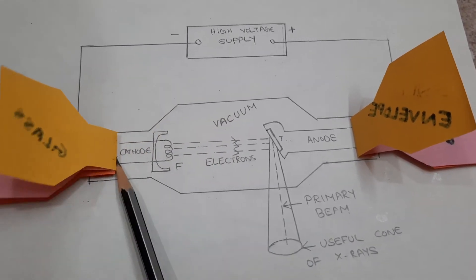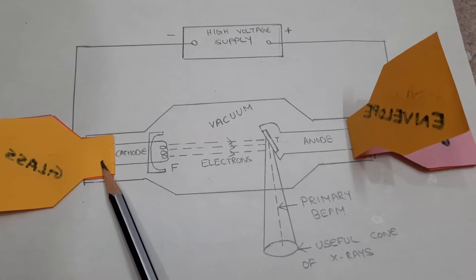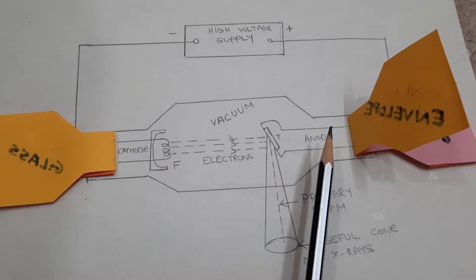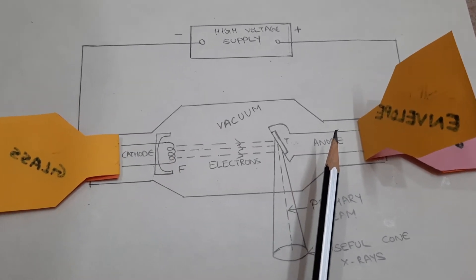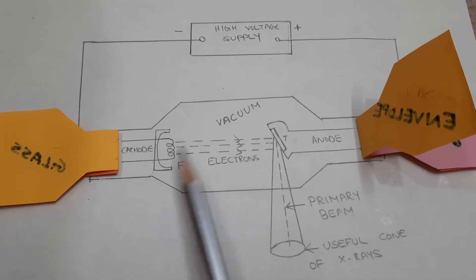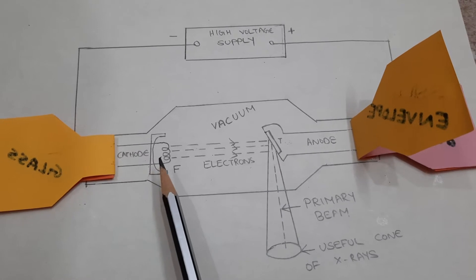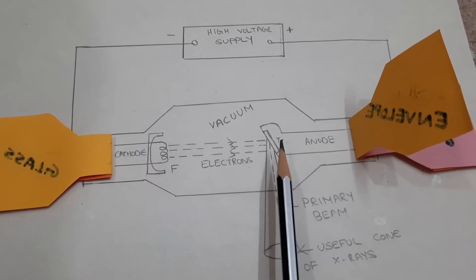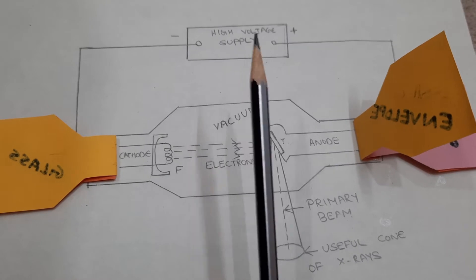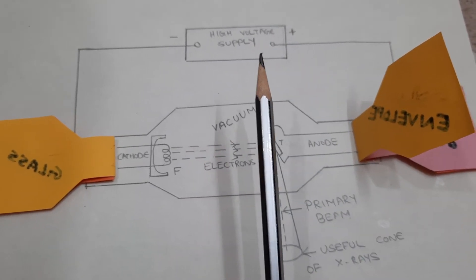Inside the glass envelope you will find the parts of the x-ray tube. An x-ray tube has a cathode and an anode. The cathode is a negative electrode, the anode is a positive electrode, and the x-ray tube is connected to a high voltage power supply.